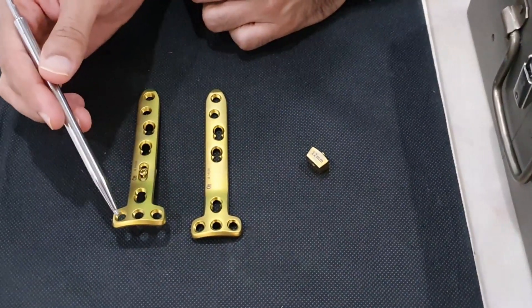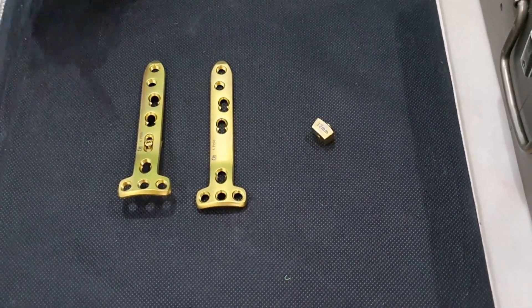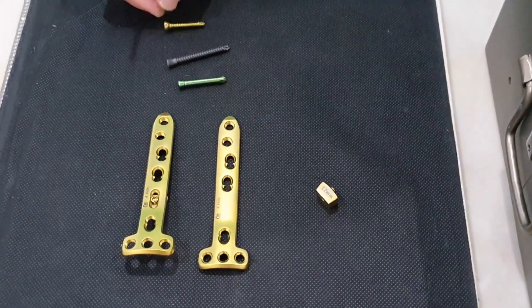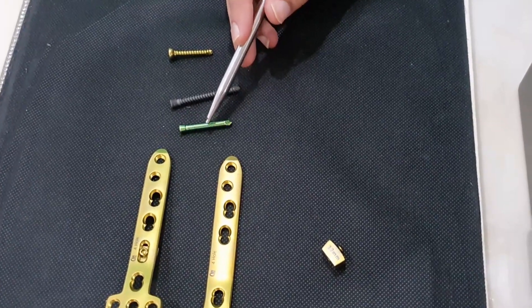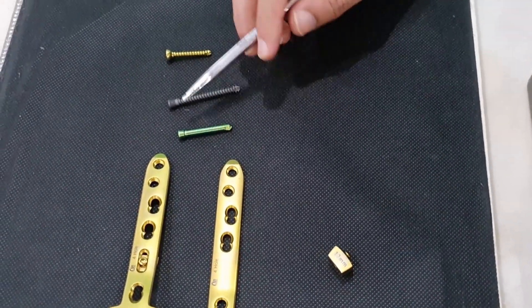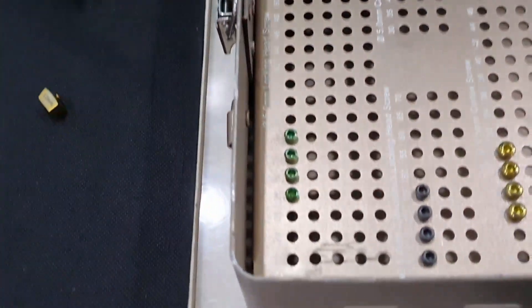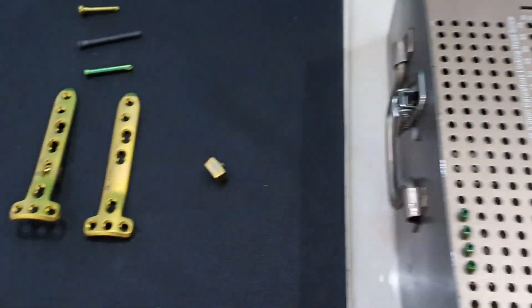There are four fixation screw options proximally and four distally. Three types of screws are available: a standard cortical screw for compression to the plate, a cortical locking screw (green colored), and a cancellous locking screw (gray colored). For the proximal holes you can use either cortical or cancellous threaded locking screws.